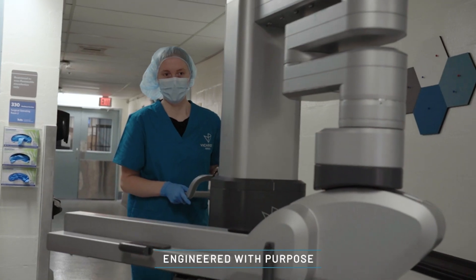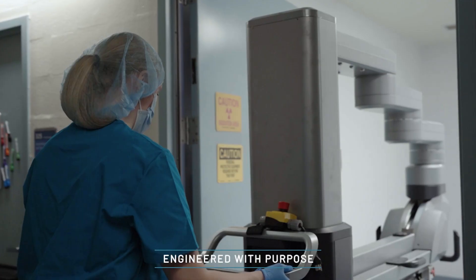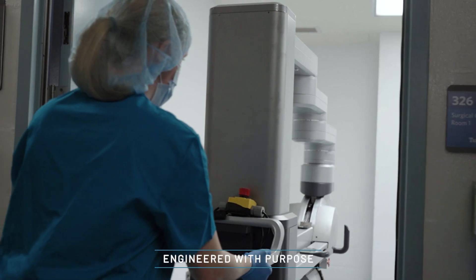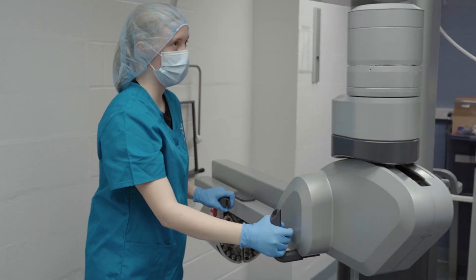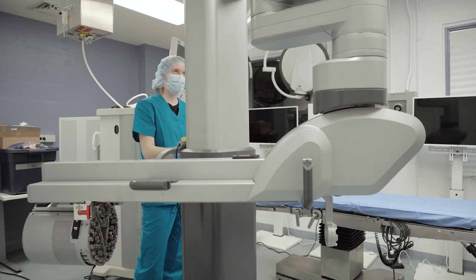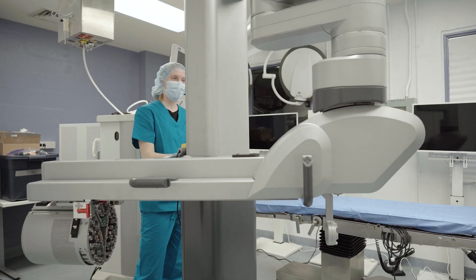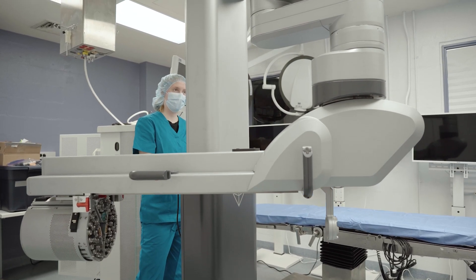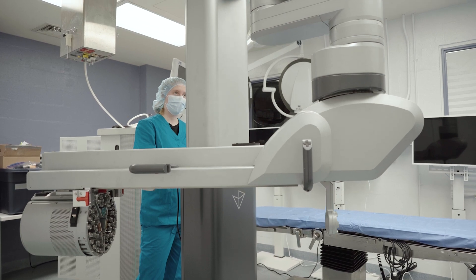Due to its differentiated architecture, the Vicarious Platform is cost-effective and easy to integrate, making it accessible to all ORs, hospitals, and surgical centers.